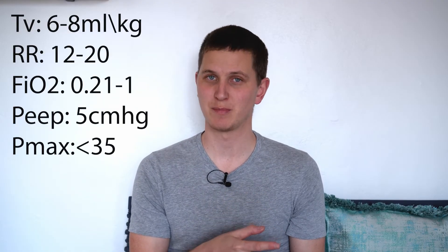So we've discussed your respiration rate, your tidal volume, your PEEP, your FiO2 or percent of oxygen, your maximum pressure, and your Pmax. Then you're going to have your IE ratio — your inspiratory to expiratory ratio.